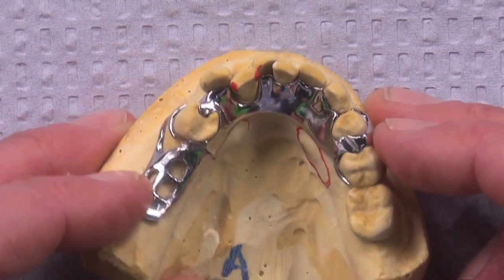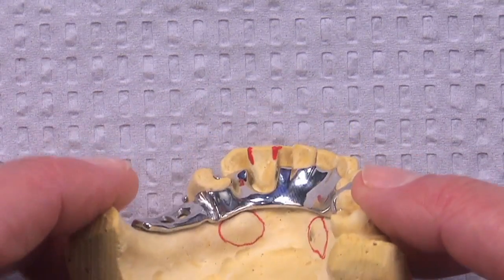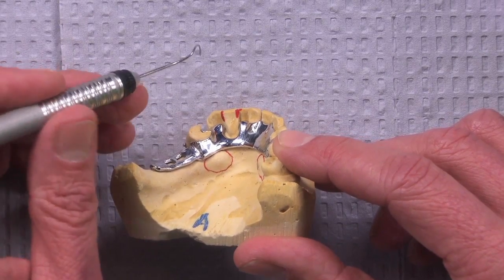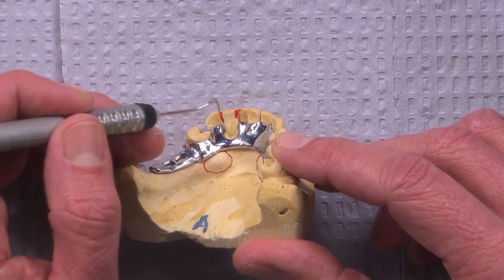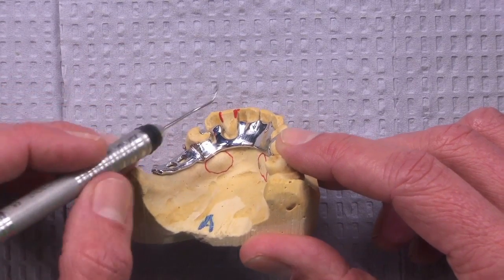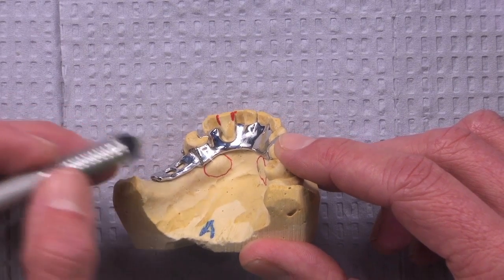So the doctor did a great job prepping things like the rest preps, but when we come to this area, had those been recontoured, and I would use a sandpaper disc here, I'd be a little afraid to use a burr there. Well, I might use a burr, but I think I would take a heavy grit sandpaper disc and go in there and flatten it and not use a burr, knowing that I'm probably going to get a better, flatter result like that.